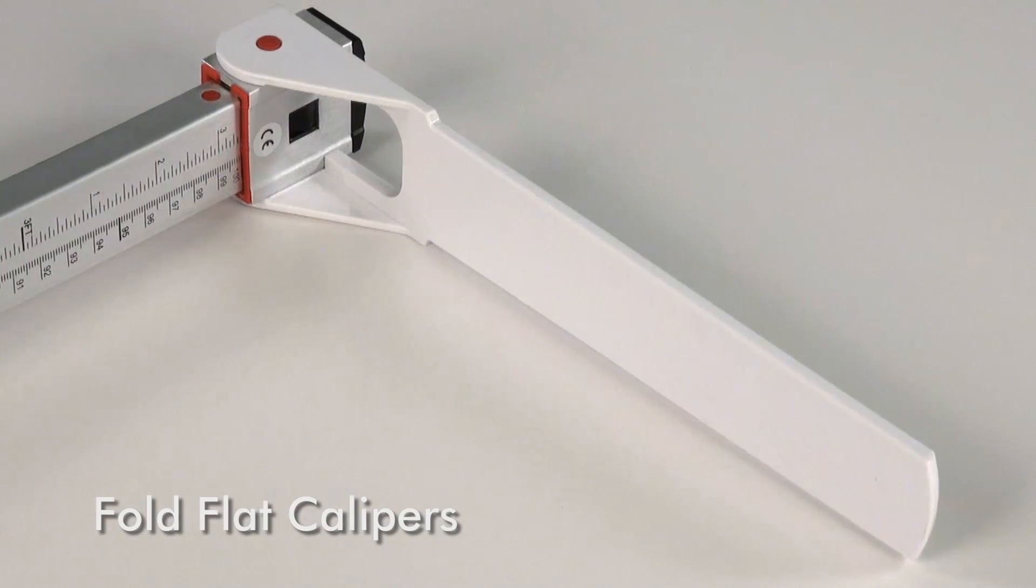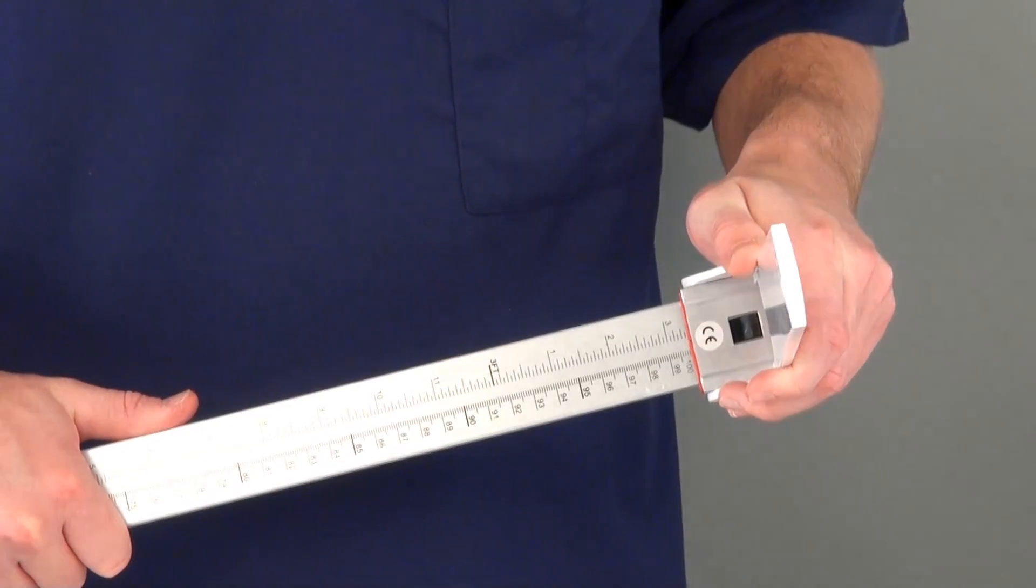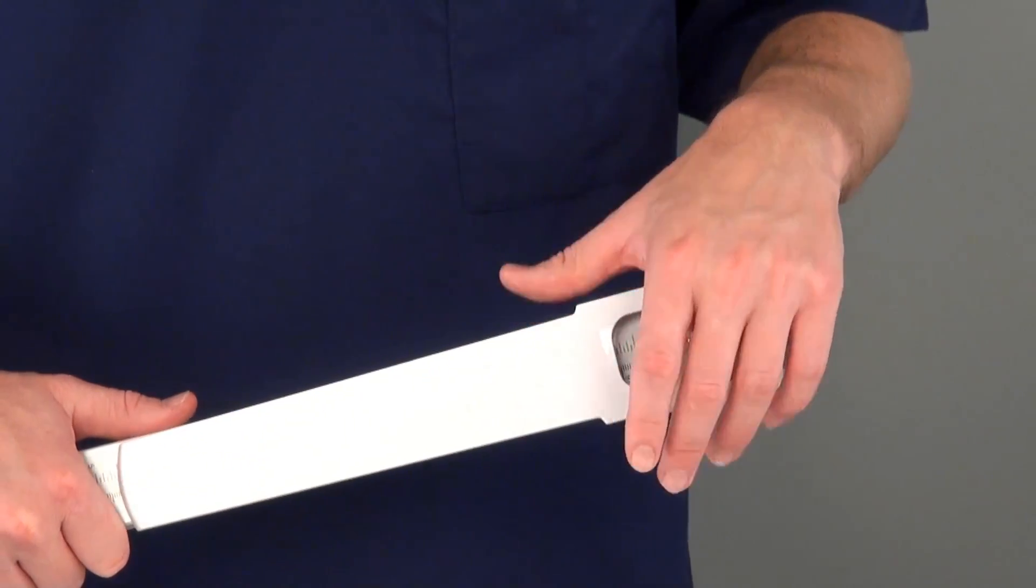The calipers conveniently fold flat for transport or storage, making the MLM useful for traveling home health care nurses.